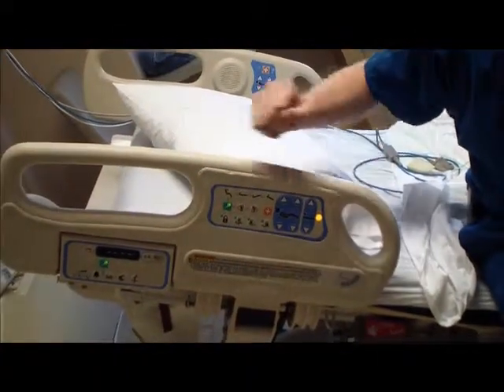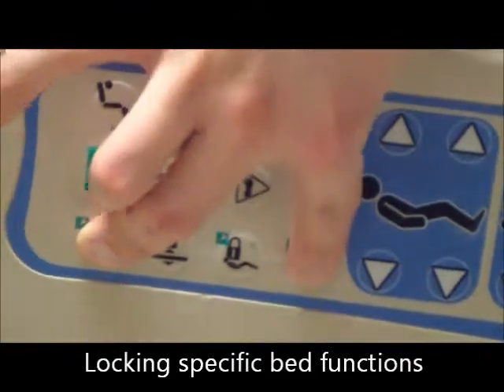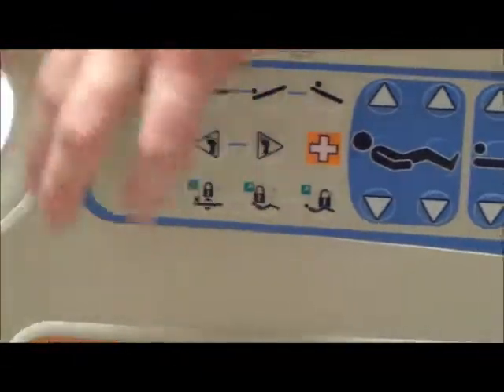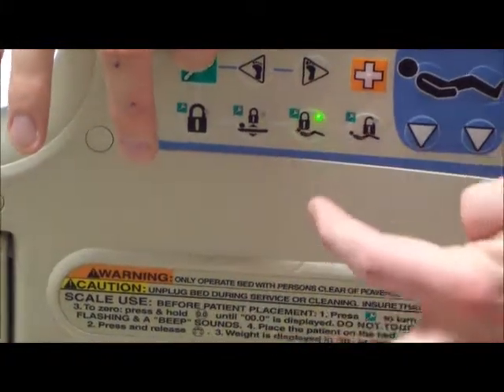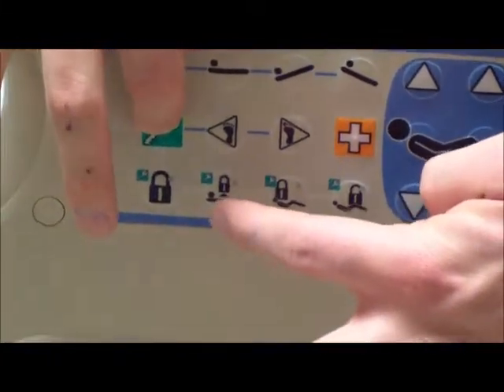Other options here on the main panel include locking ability for the knee part. So green key, and you activate or deactivate whichever aspect you'd like to modify.